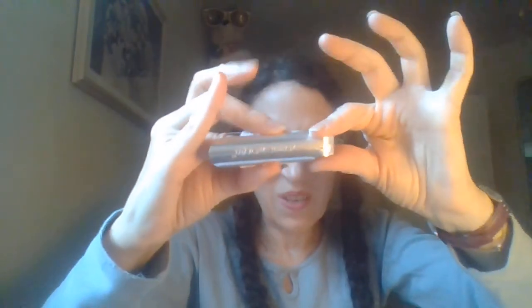Now I have some new tube and I'm going to hold on to it with my pinky and my thumb because I'm wrapping my fourth finger — my ring finger, to you non-musicians. Then we're going to pull the metal jig out again. There's still a little bit of gauze left, so one more time a 180-degree turn, and this time I ran out of gauze. So now I'm going to hold on to the gauze and pull the applicator off.